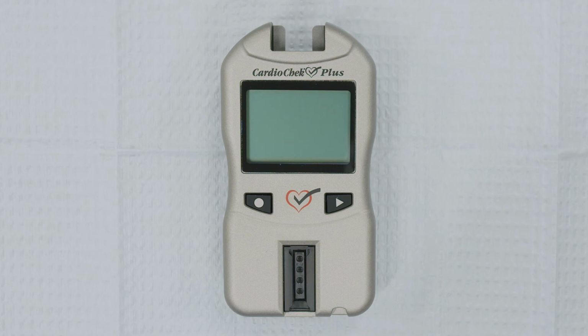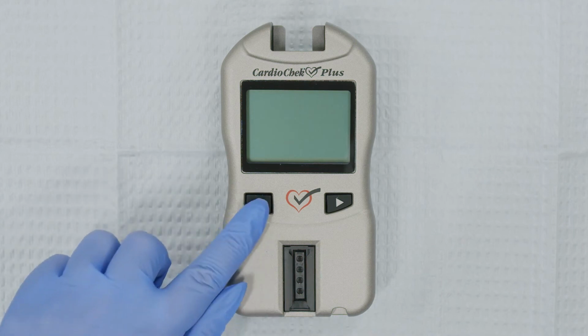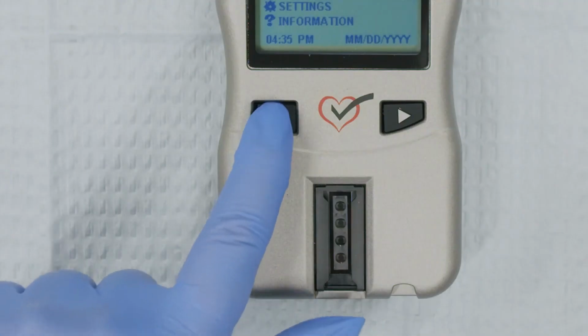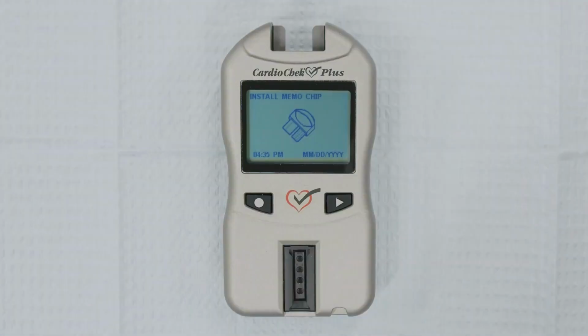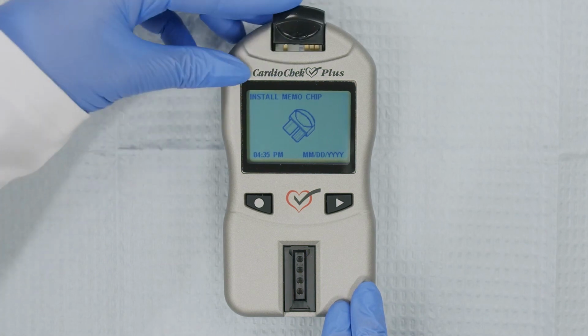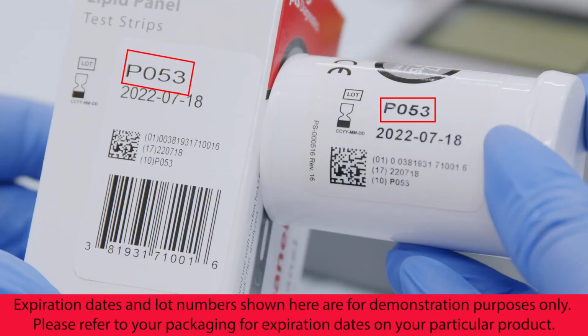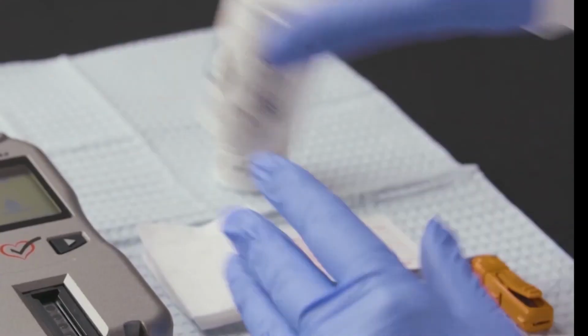Turn the analyzer on by pressing either button. Patient Test will be highlighted in the main menu. Press Enter. Install the Memo Chip as instructed on the analyzer screen. A lot number will appear. Make sure that the lot numbers on the screen, on the Memo Chip, and on the test strip vials match.